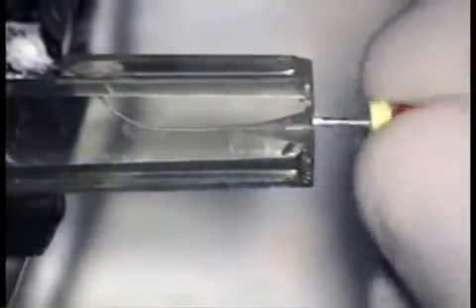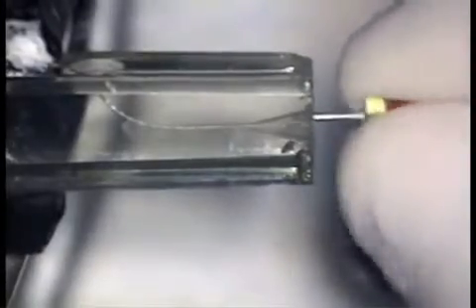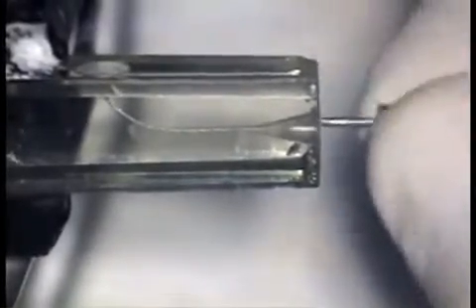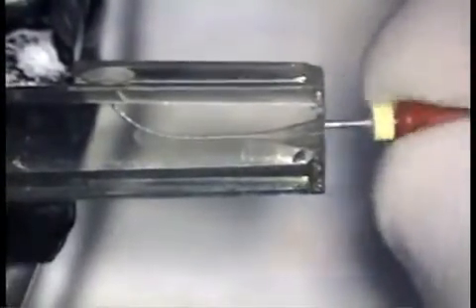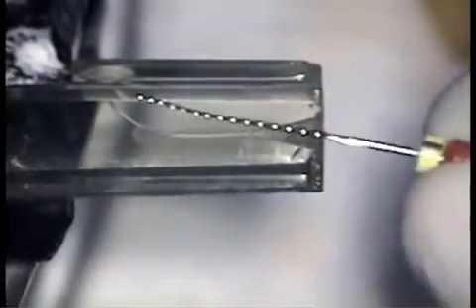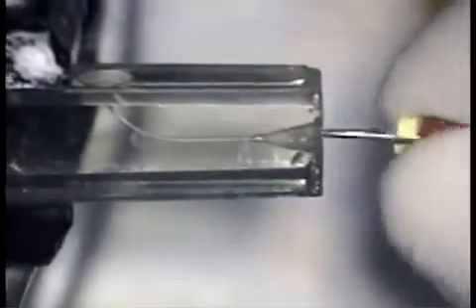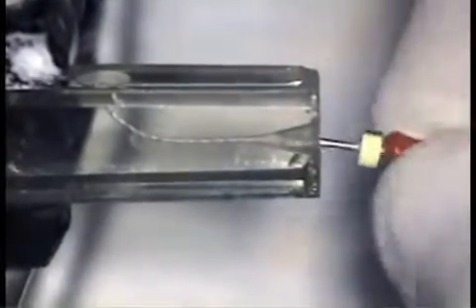The number 25 relieved reamer encounters more resistance than the 20. Shorter strokes are required for a longer time to negotiate to length without distortion to both the tooth and the instrument. Note how the instrument records the shape of the canal when the instrument is used with the appropriate short stroke. At this point, the benefit of a 30-degree reciprocating handpiece should be self-evident.